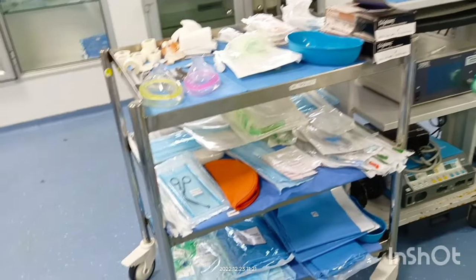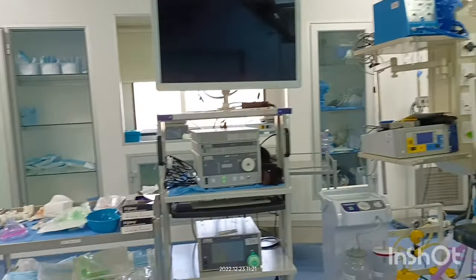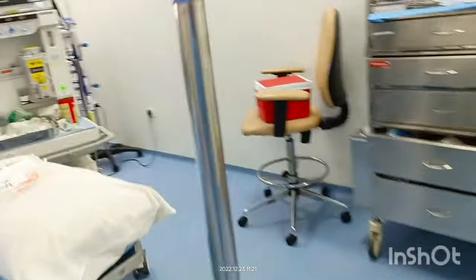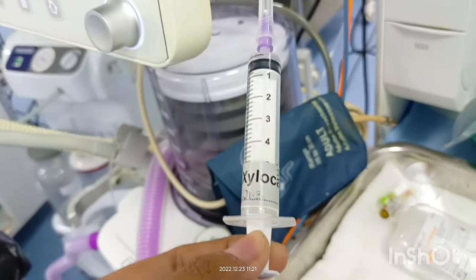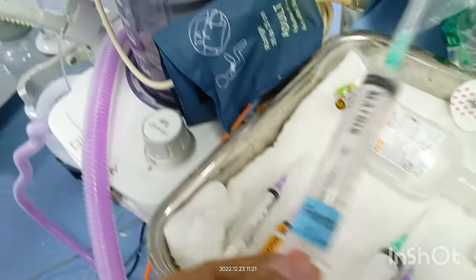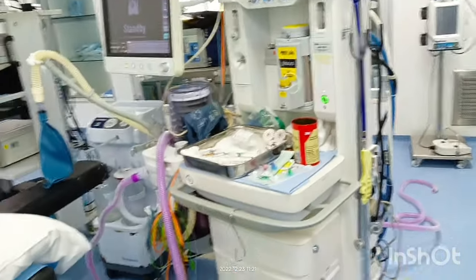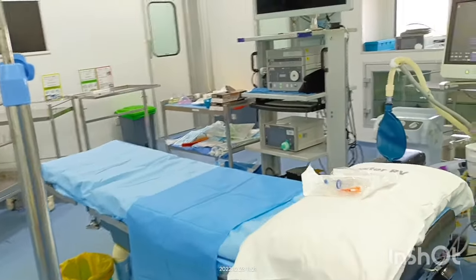In every OT room there will be specific devices — for example, for laparoscopic surgery there will be a laparoscopic tower, and before the surgery proceeds we need to connect it with all the relevant monitors. One major thing when loading injections is to put a name tag on each one — for instance, writing midazolam or fentanyl on the syringe. All wires and breathing circuits should not be tangled, and we must check everything before the patient comes.